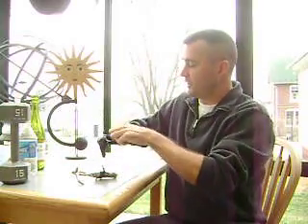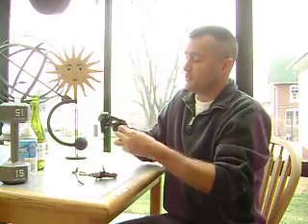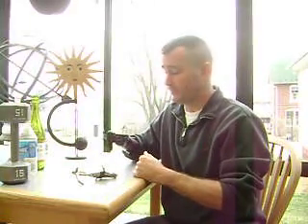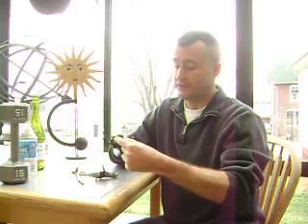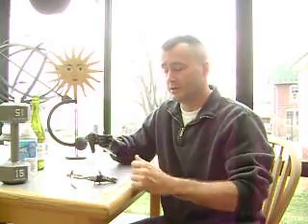The tension bands can be applied without the use of a special tool. You can even use a regular household rubber band on this to set your tension. The hook itself can also be used as a right hand or a left hand — all you do is unscrew the fingertips and turn them around. The biggest advantage overall is that when I'm operating my traditional hook, because I have to have enough tension on there to do the heavy items, every time I cycle that, it's putting some stress on that shoulder harness and my upper body.